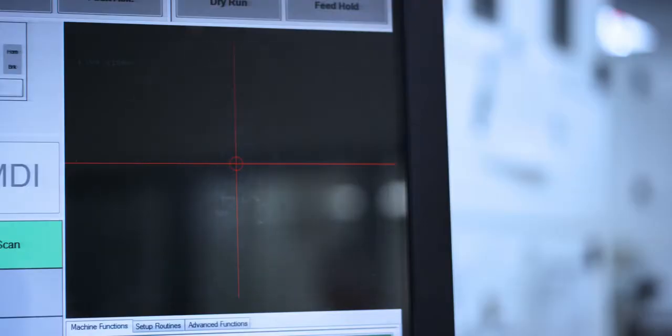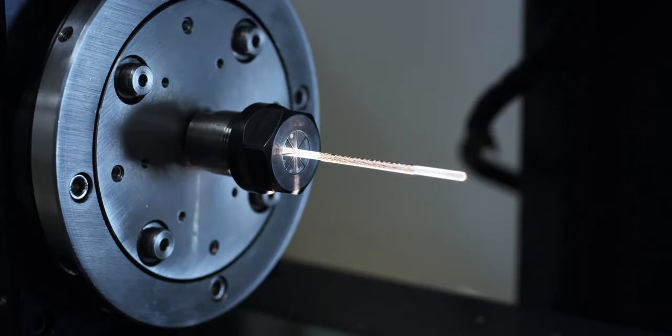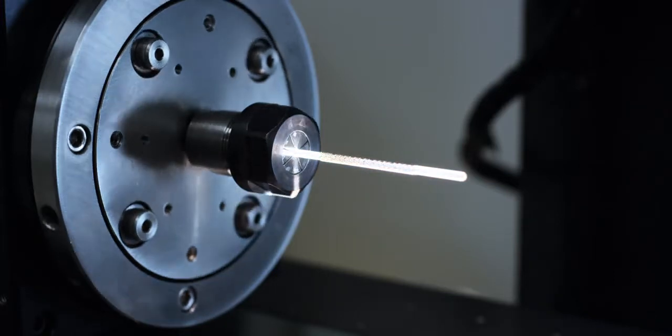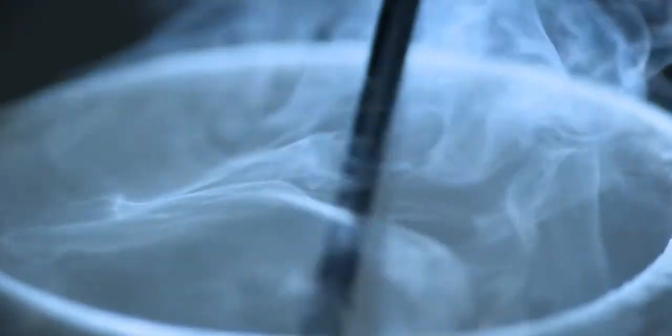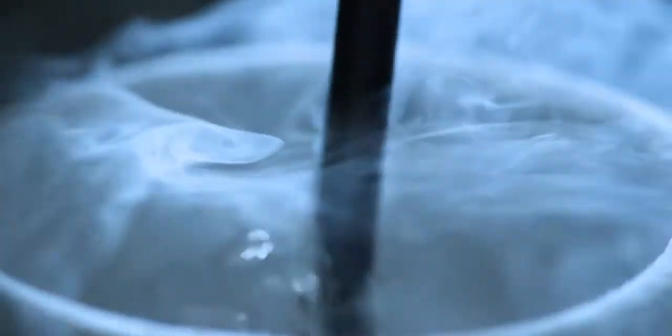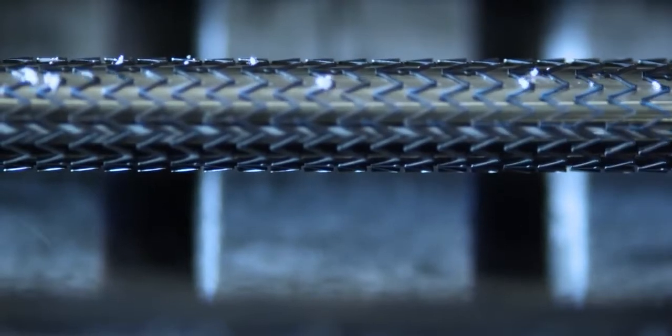Optimized strut dimensions for outward radial force, compression resistance, and durability. A peak to valley pattern that provides flexibility and a smooth lumen on any bend. Closed end cells for deployment stability and open middle cells for greater flexibility.